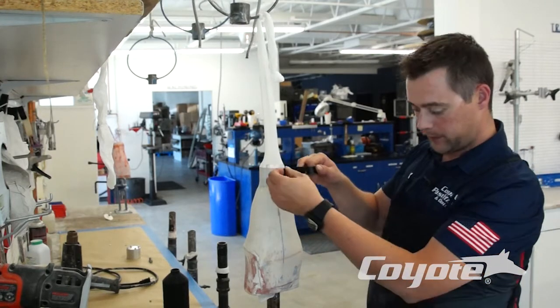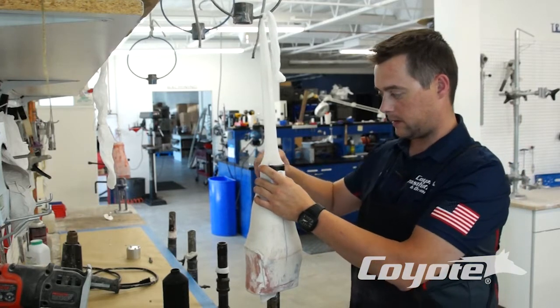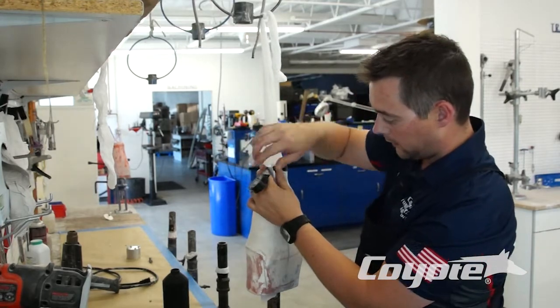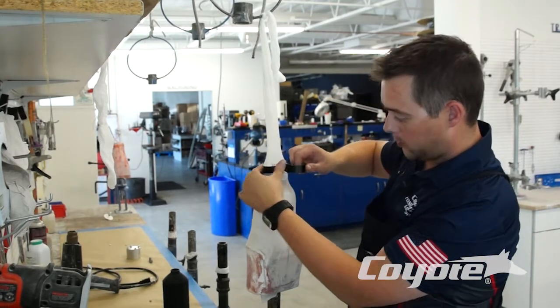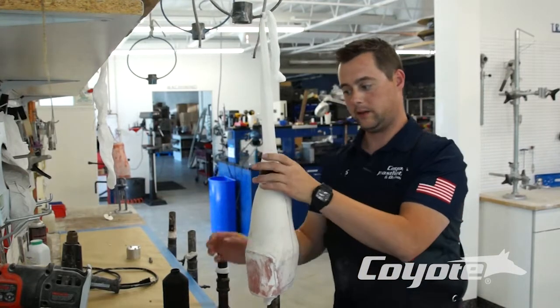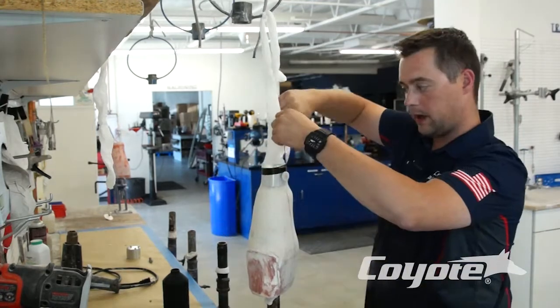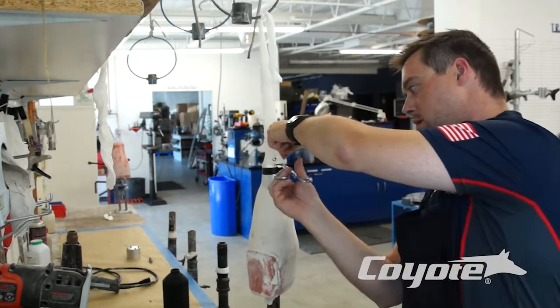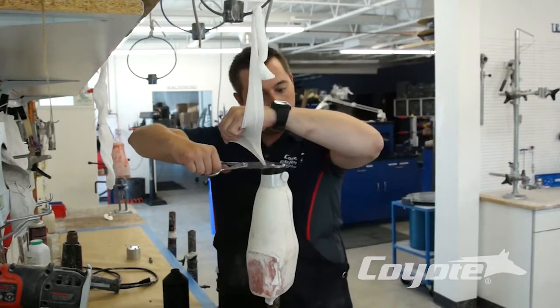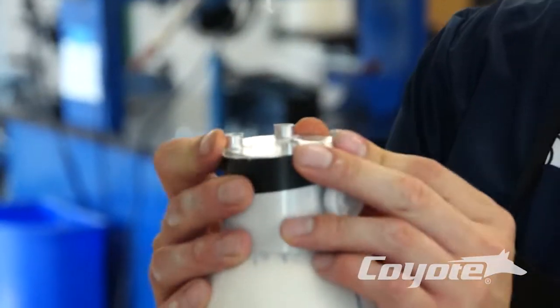What we're going to do is take a piece of tape right here, just over the top of this, and pull that tape all the way around your nylons there. So when we pull our PVA bag, we'll have enough space to bring that down and tape it right to this spot. Then cut our nylon right above our tape — a razor blade sometimes works a little bit easier and you can get a tighter cut on that.